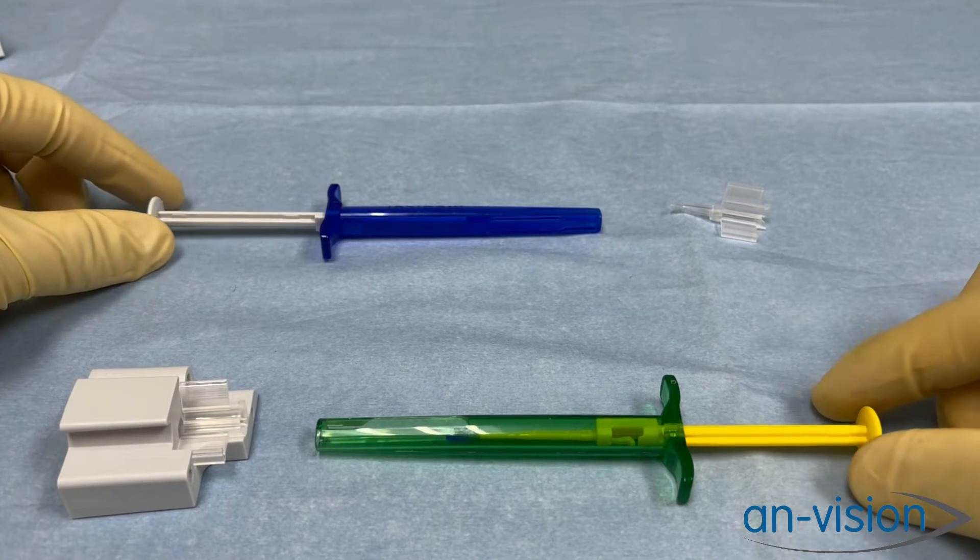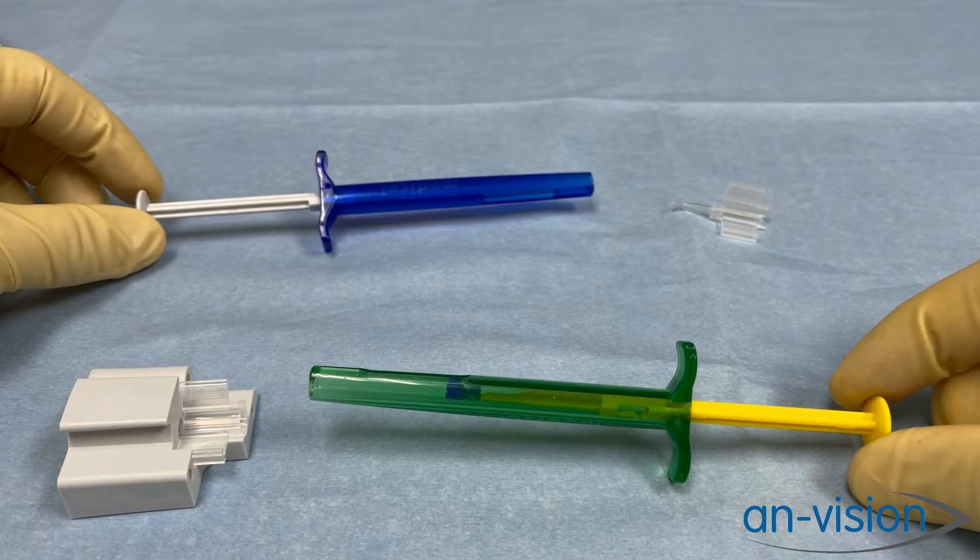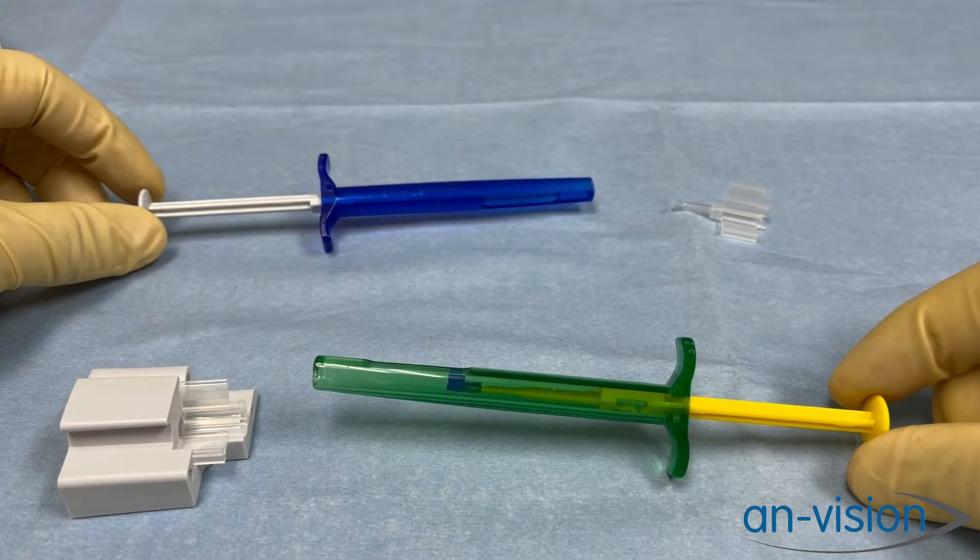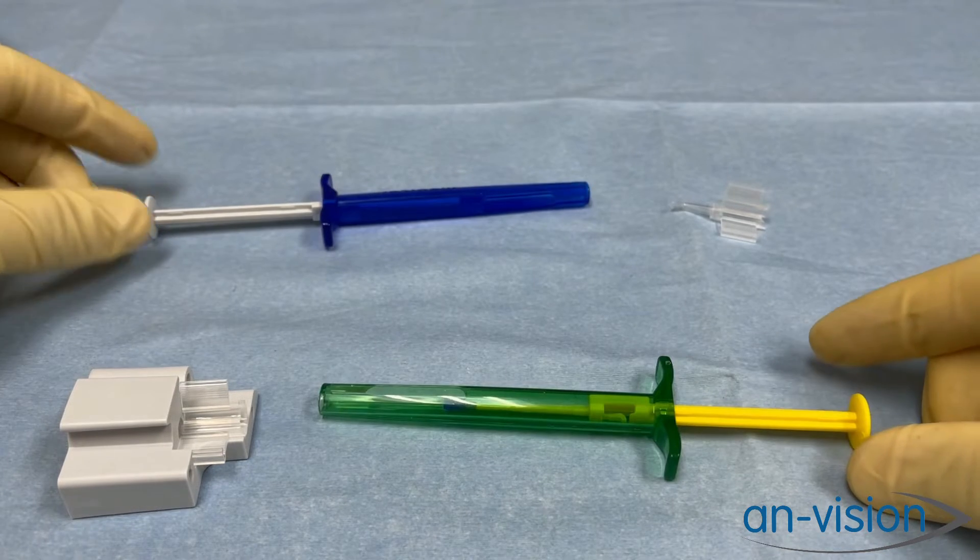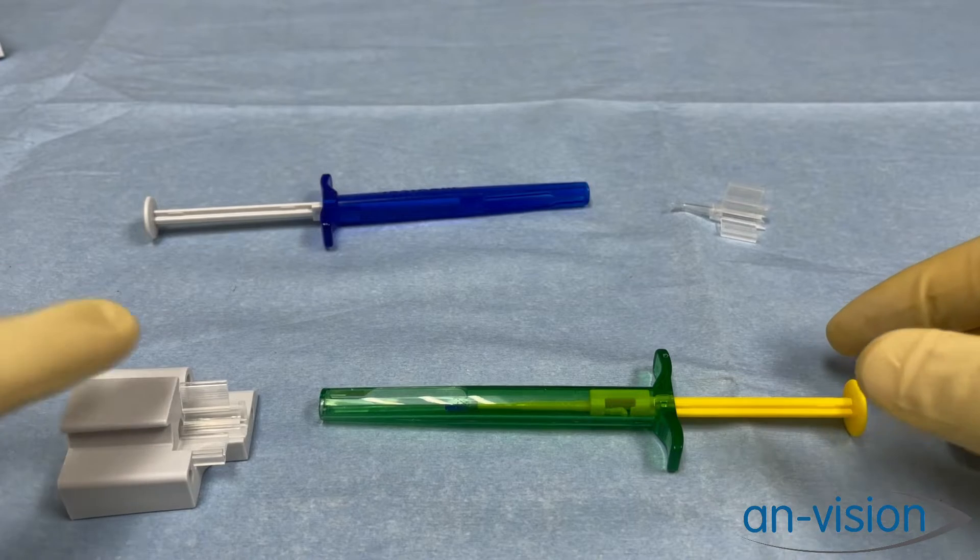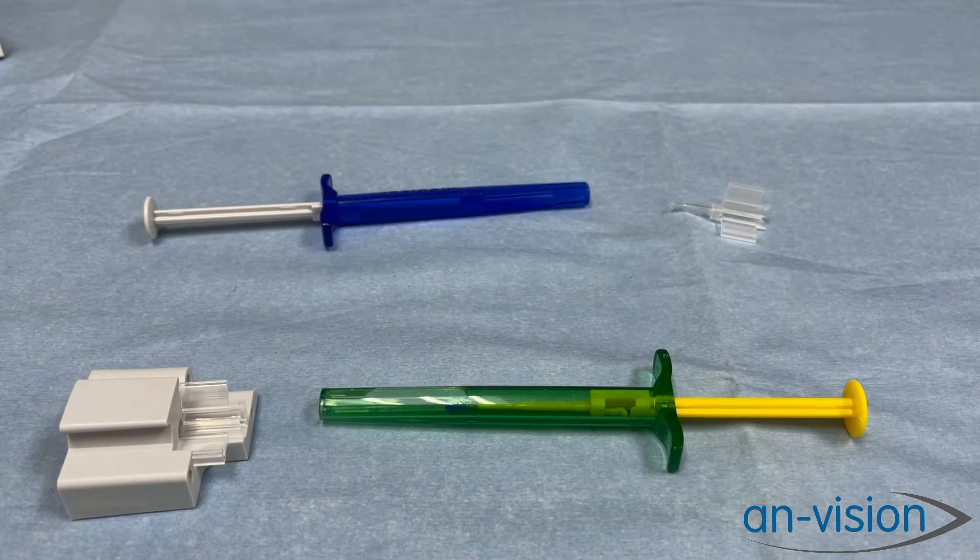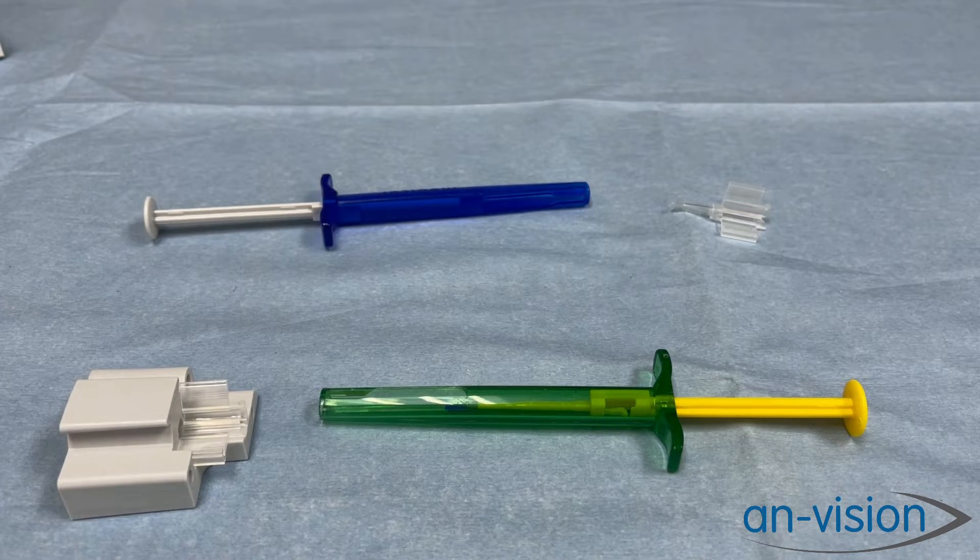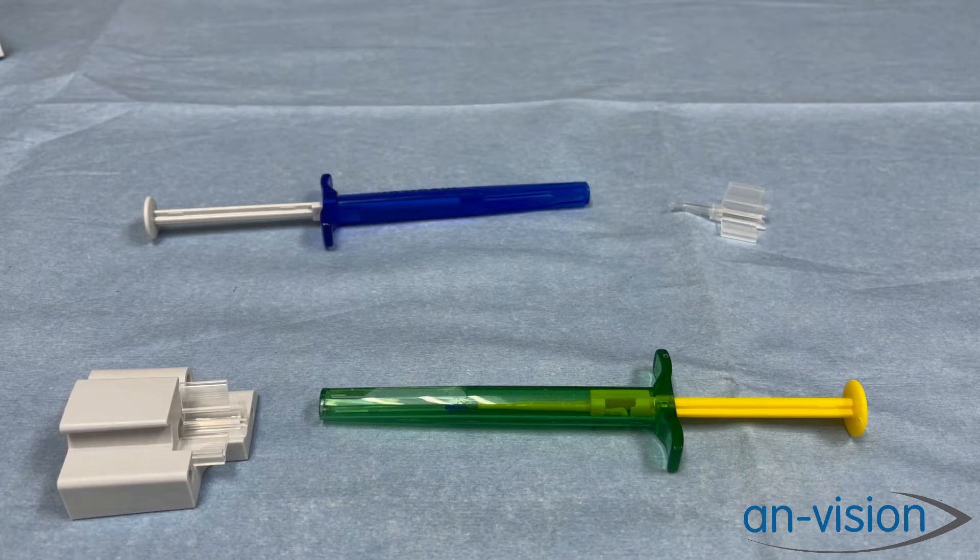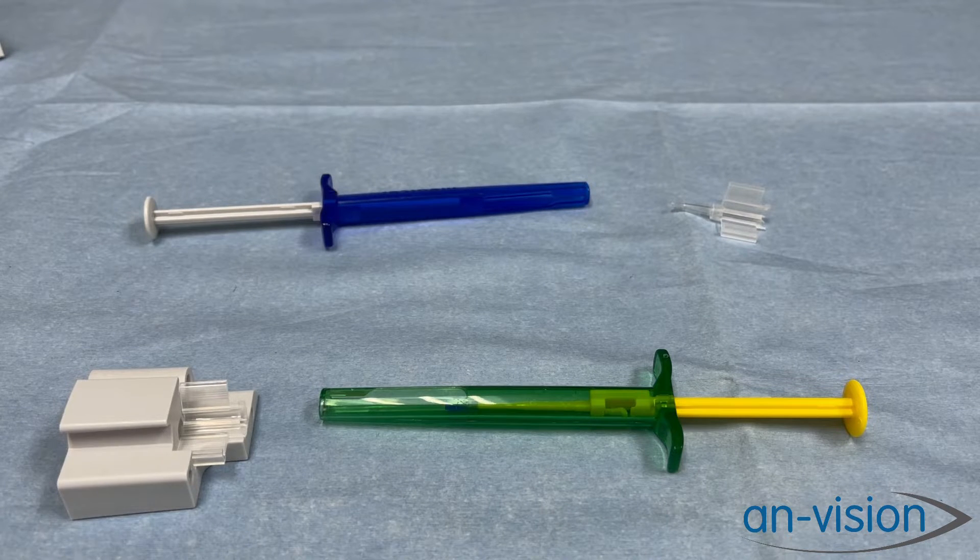As you can see, they are the same design. The only difference between these two injectors is the Viscoject Easy comes with a loading block, and the purpose of the loading block is to prevent dropping an IOL during the loading process in surgery.